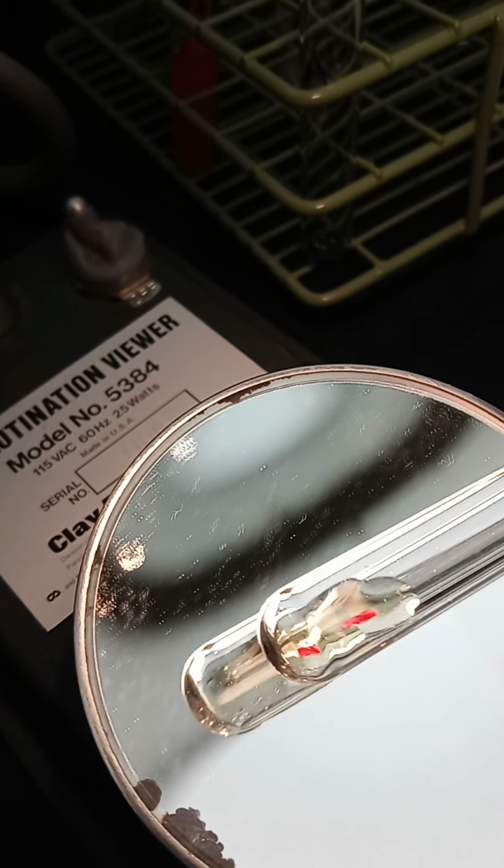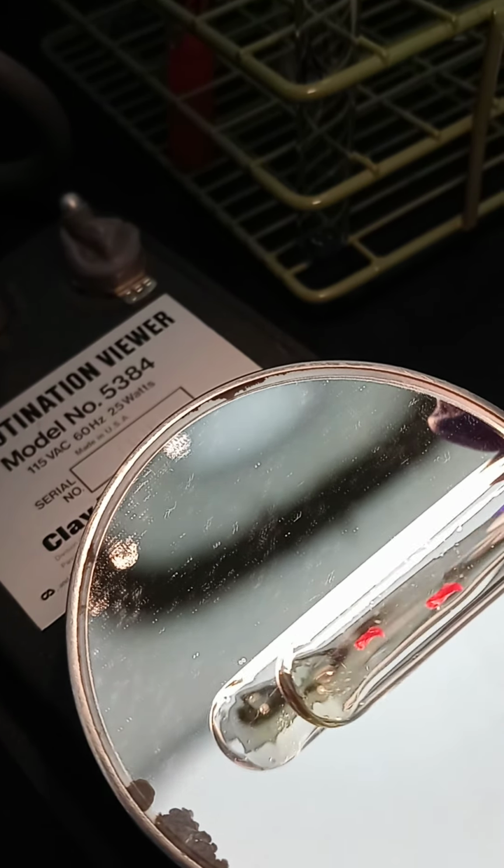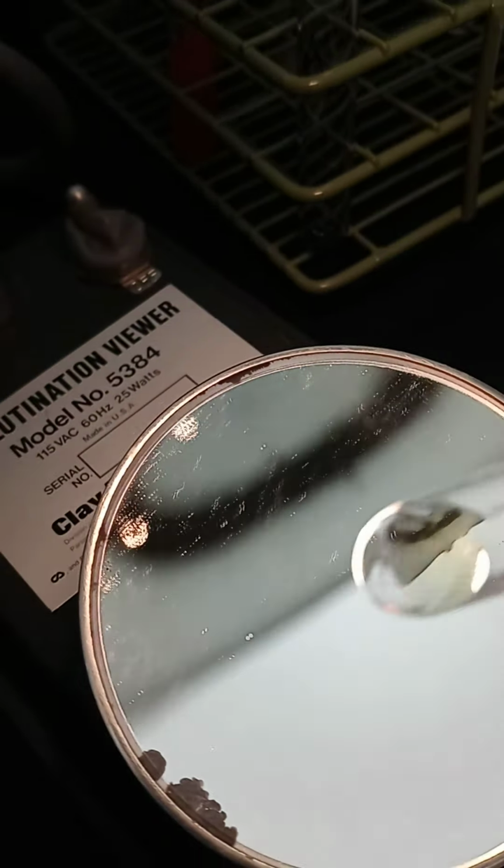what is the reaction of the anti-A tube? And that's this one. So you would tell me what you would grade this reaction. And then your anti-B tube. Okay, your anti-B. That big clump stuck up there. Okay, you just have one big clump there. It looked like two in the mirror, but you just have that one clump for your B.